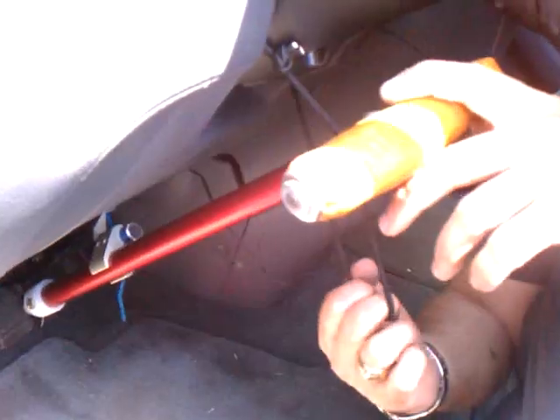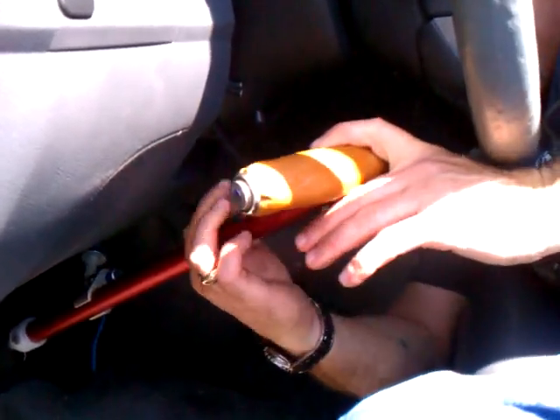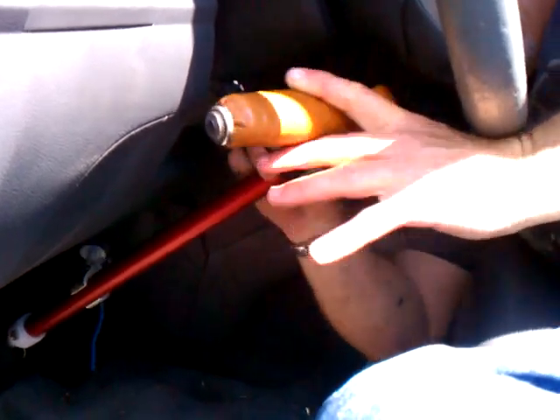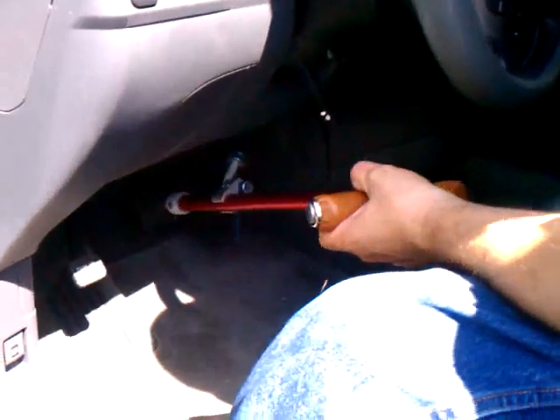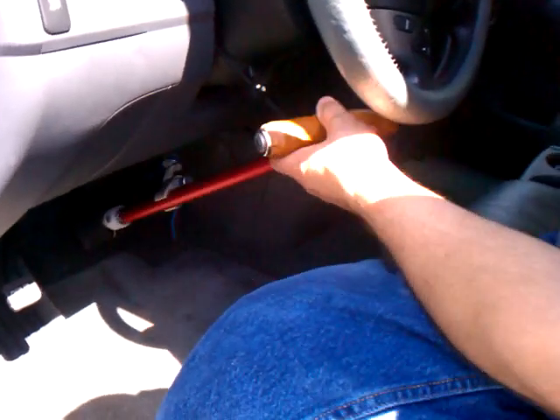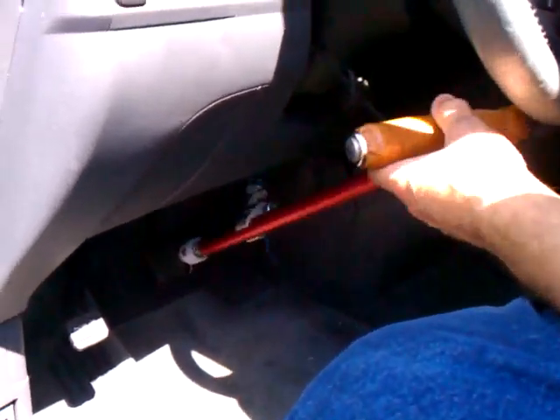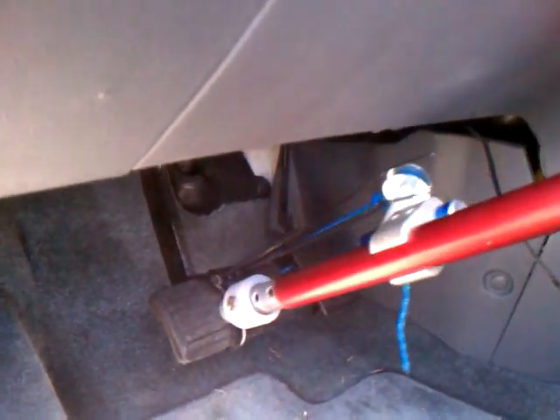And then bungee cord wrap. It's right under the wheel. There's the brake, there's gas — either pull or twist. Gases.